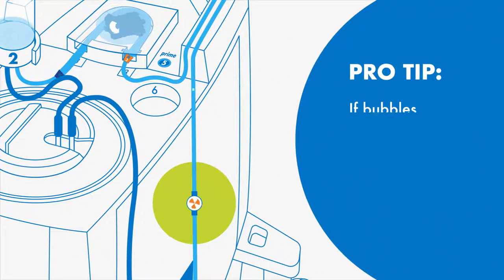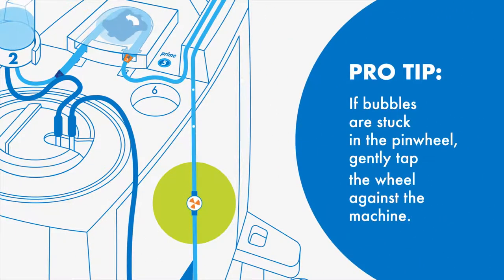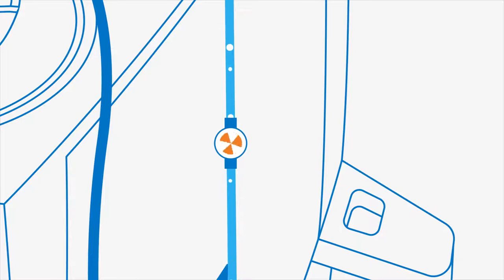Confirm the pinwheel turns and there's a steady flow of saline in the tubing. If bubbles continue to circulate after 2 minutes, re-check the previous steps.